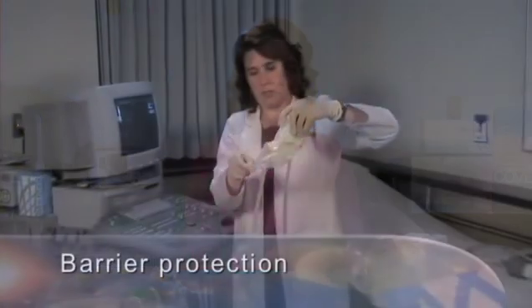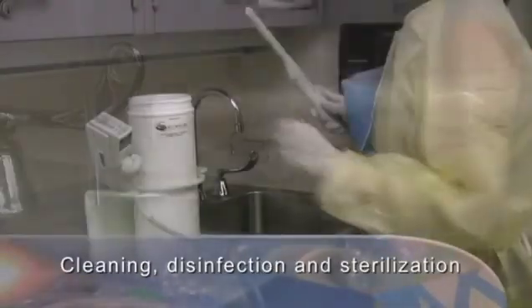To summarize what we have reviewed in this presentation: for ultrasound scanning, the proper use of barrier protection and the cleaning, disinfecting, and sterilization of ultrasound equipment is essential to reduce the risk of cross-contamination and transmission of disease between patients and staff. Both the operator and patient need to be protected from communicable diseases, and this is readily achievable with the appropriate use of the correct transducer cover. Thank you.